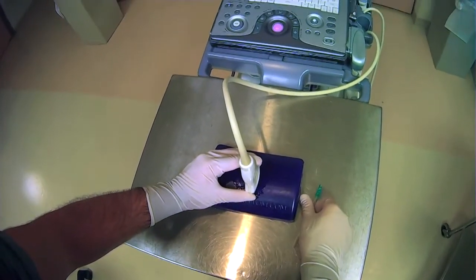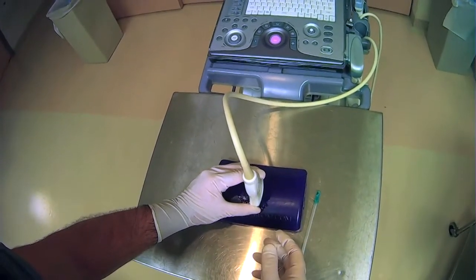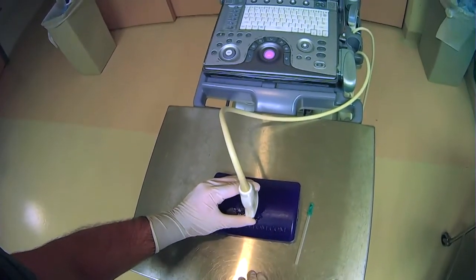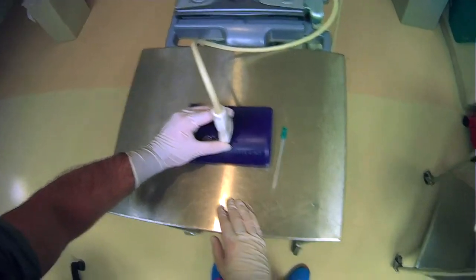So it can be very commonly overlooked, but holding the ultrasound probe properly in such a way that is secure and stable is very important to the success of your procedure.